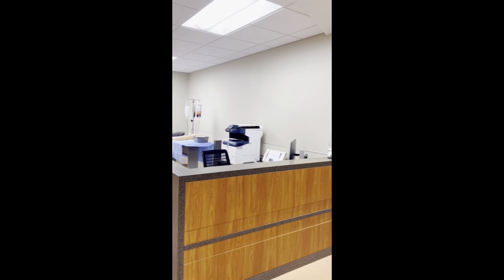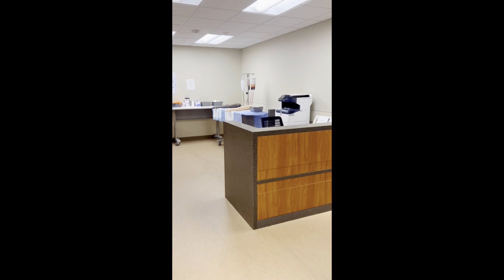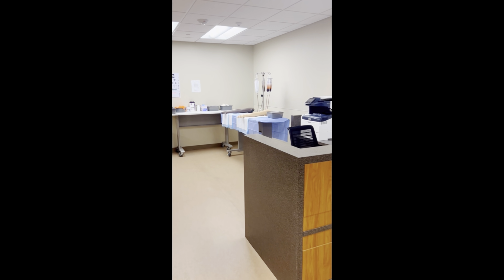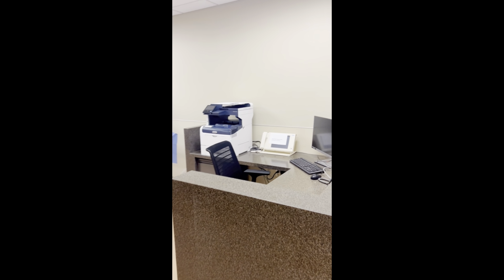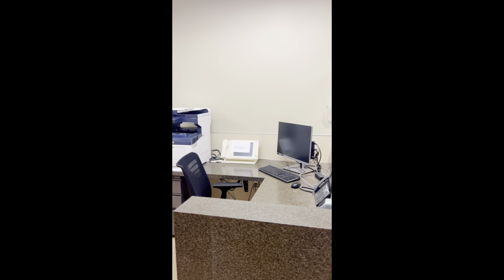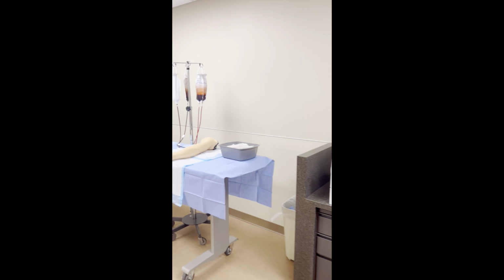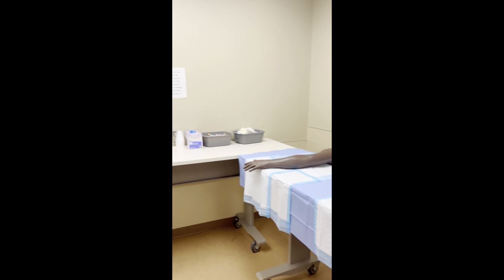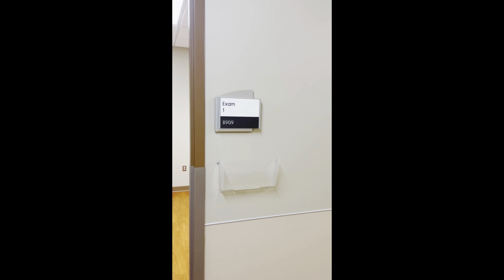Okay, welcome to the Simulation Center. I had to slow down this video a little bit so I can talk y'all through it. To the right is our nursing station. We don't use it for much, but we've had some people come in to do exams there. Otherwise, we just use it to print. Next you can see our IV station. I will have a little bit of a video at the end showing you how I set up one of those arms, and there is some of our IV supplies.